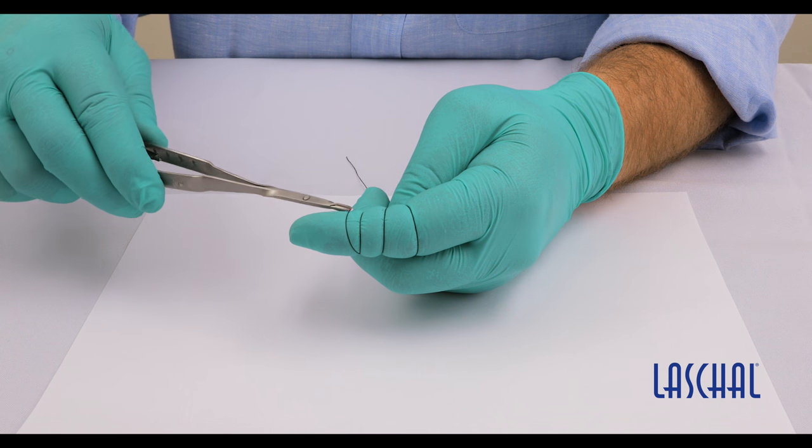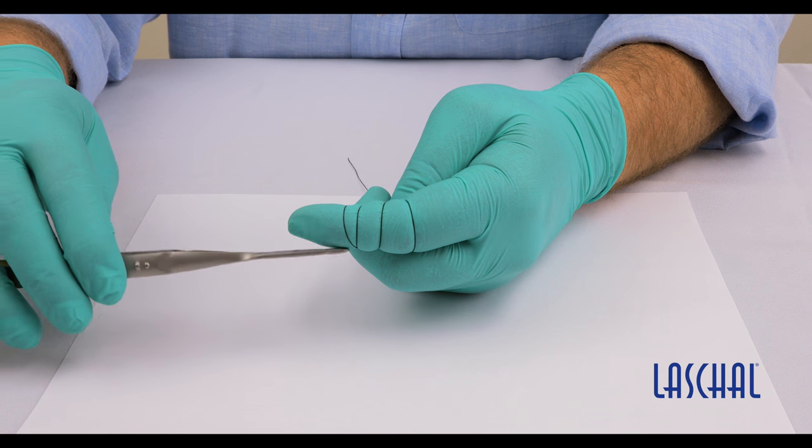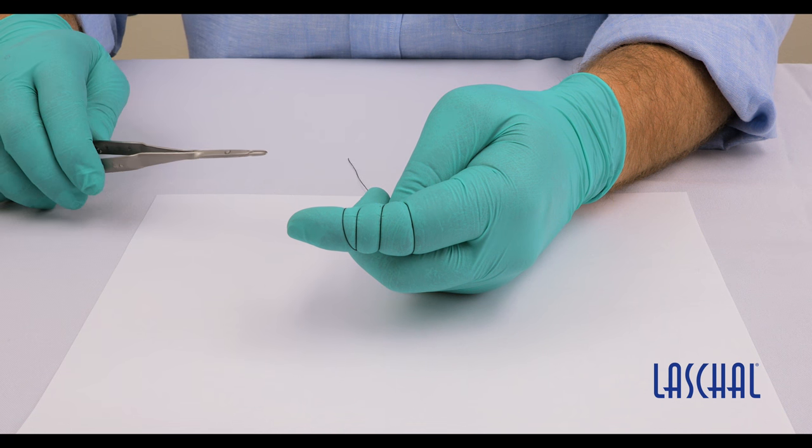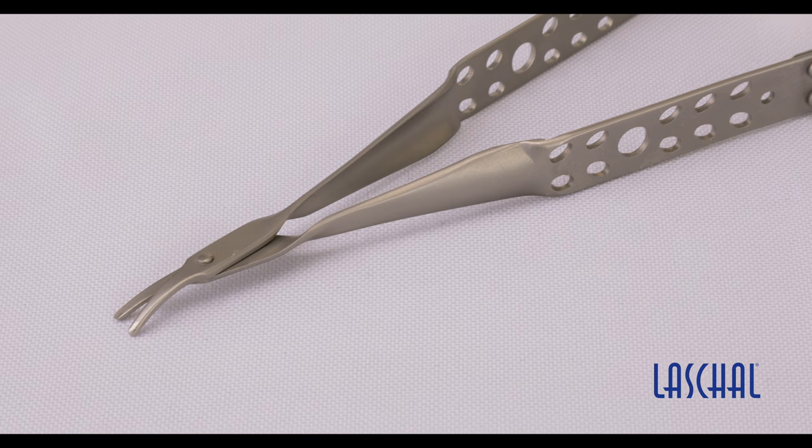The problem is that when you create space between the suture and the tissue, it may cause a laceration underneath where it can't be seen, which will lead to more discomfort, more trauma, and ultimately an extended healing time.